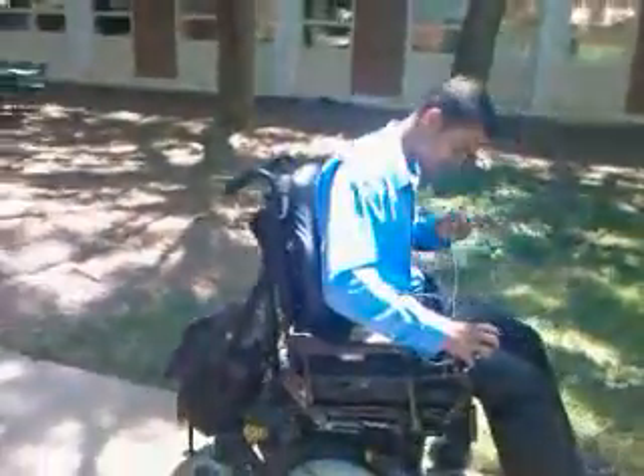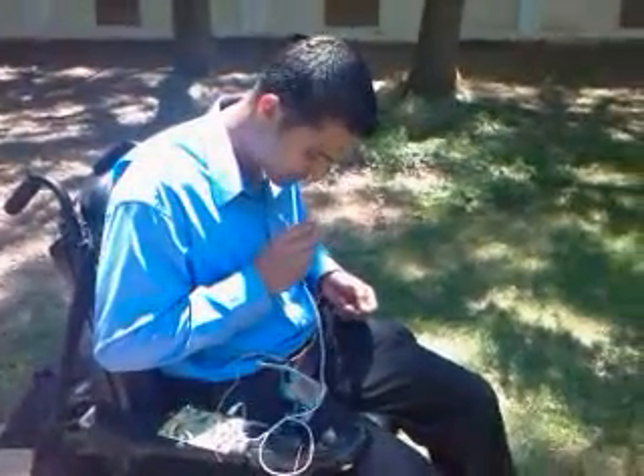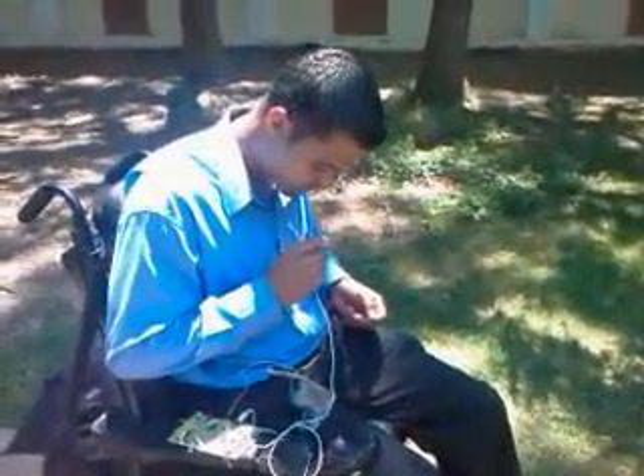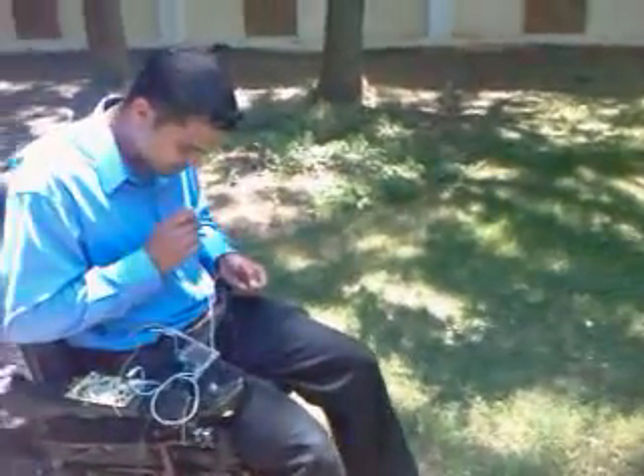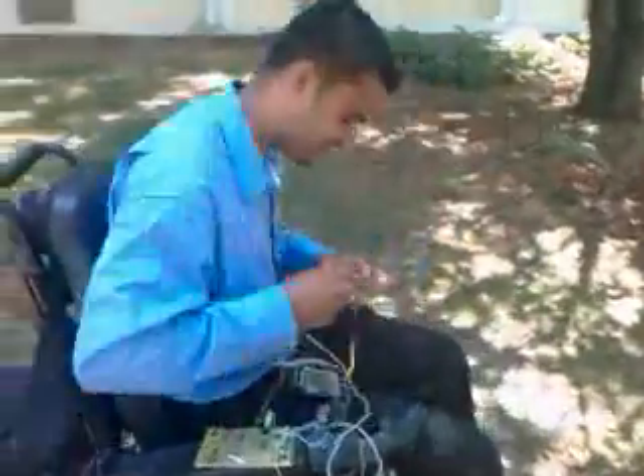Actually, stop — before I flick the switch. You can't turn, right? No, you have to do humming and do a slight turn to the right. Control. Right. Go. Forward. Forward. Speed. Two. That is really cool. Stop. Crazy.